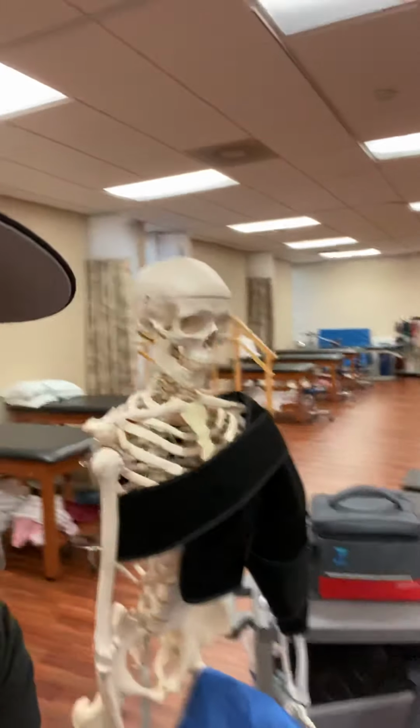And I've got a great model who's helping me today, and I'm really excited to introduce my model, because this model, in the day of COVID-19, has no droplets that he can spread on me. And his name is Bony Tony, and we use him for a lot of things in our program here. But Bony Tony is wearing both of our devices. And so I'm going to show those to you right now.